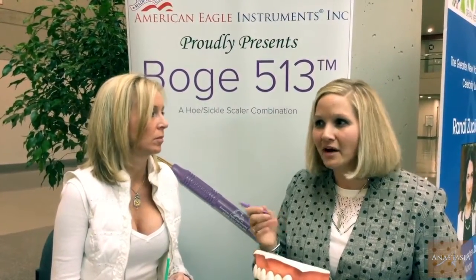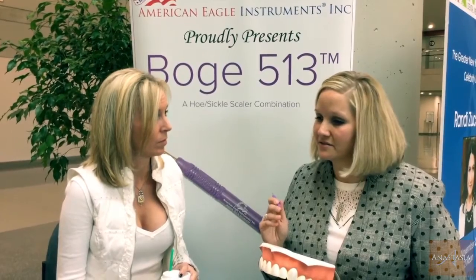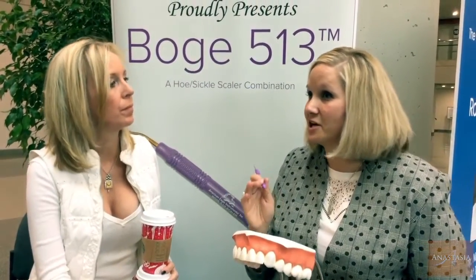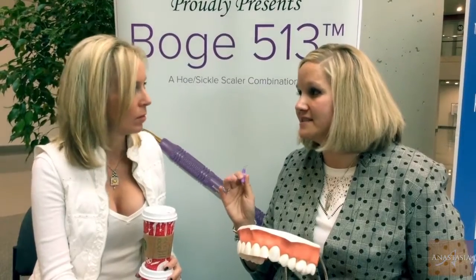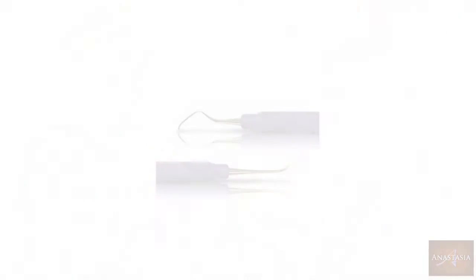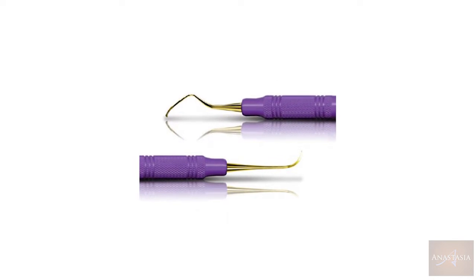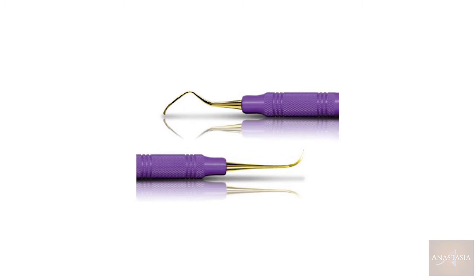Because you can be so feather-light with your strokes, you don't have to feel like you're cranking. It goes a long way for ergonomics. I'm the program administrator at school and I'm always telling the students, you have to take care of yourself. Because if you don't take care of yourself, you can't take care of your patient. People can understand that it's going to start sharp and stay sharp and stay consistent. I think consistency is key. Every time you pick up an XP instrument, it's got the same cutting edge, it's got the same shape, you're not whittling it down, so you know what you're putting in the mouth every time.